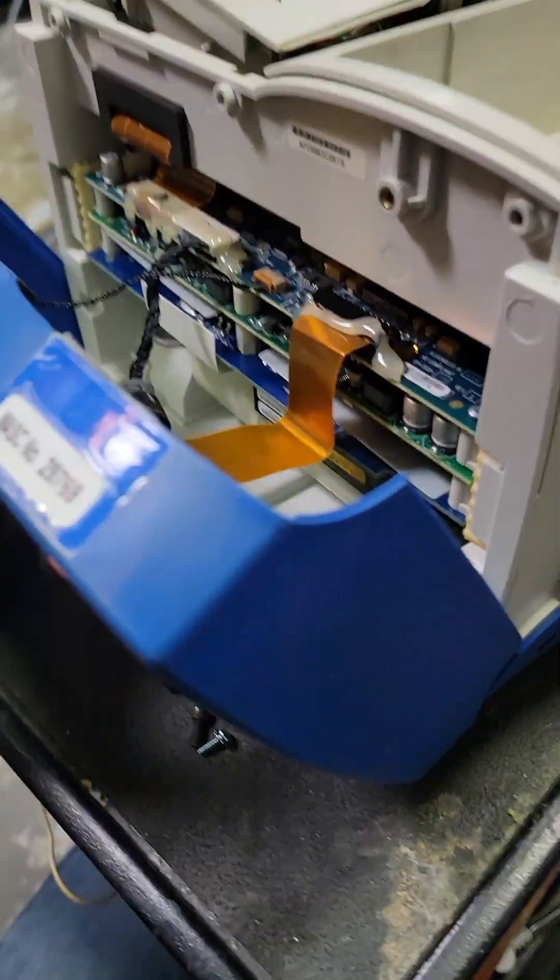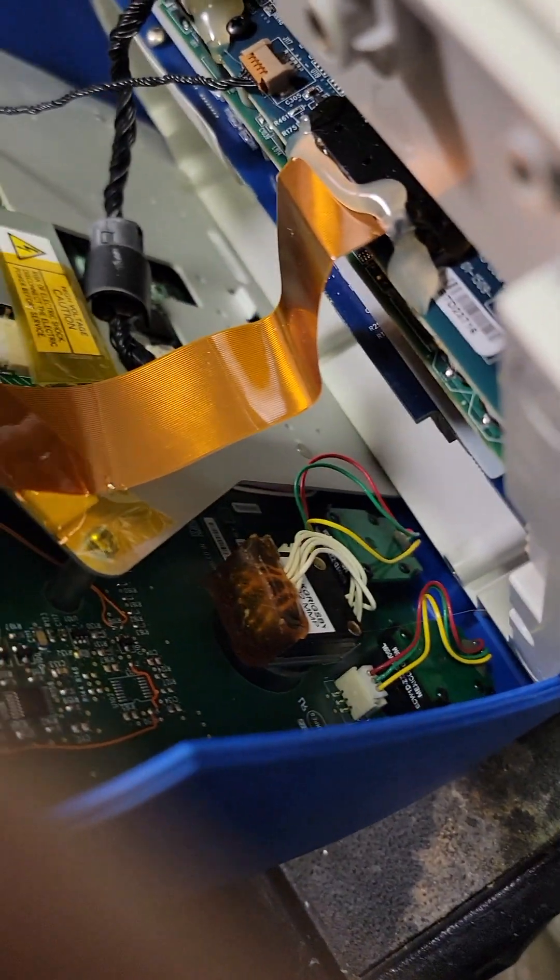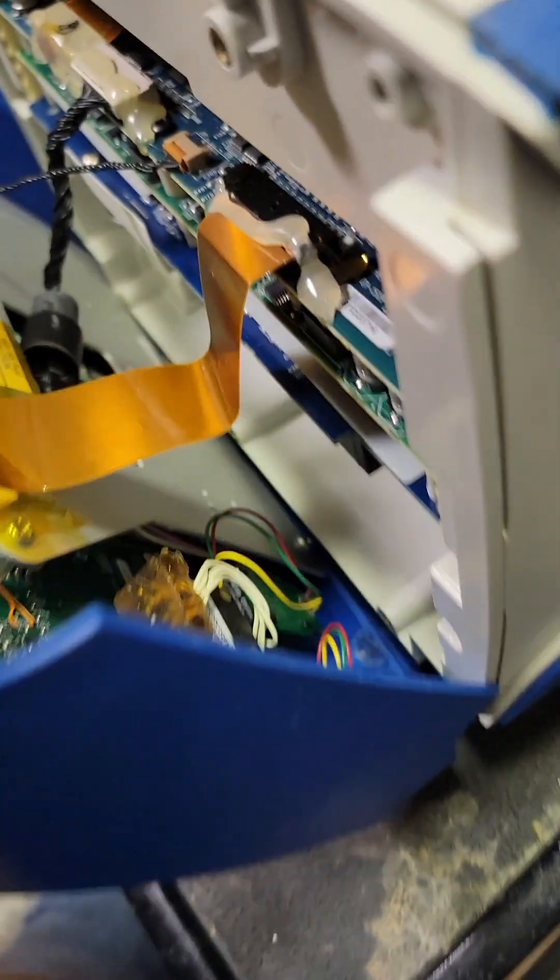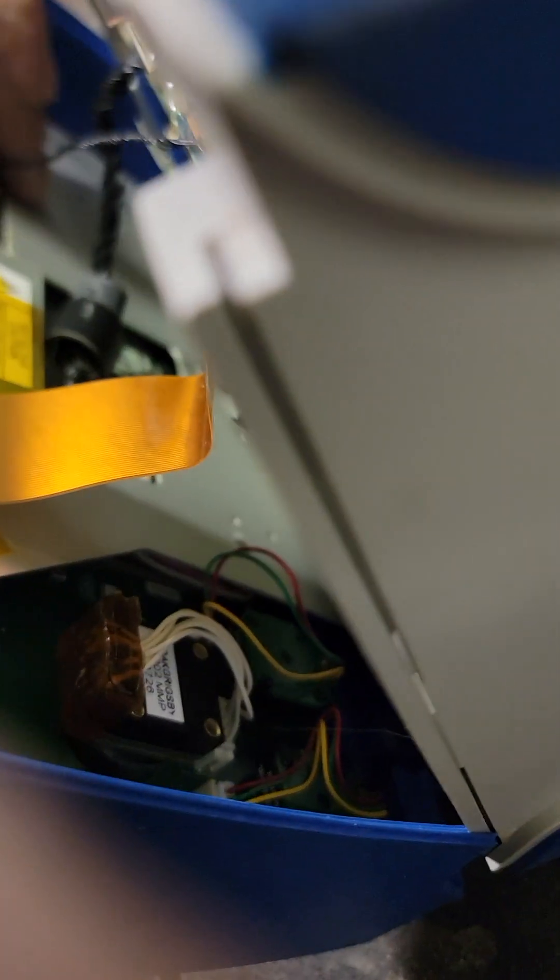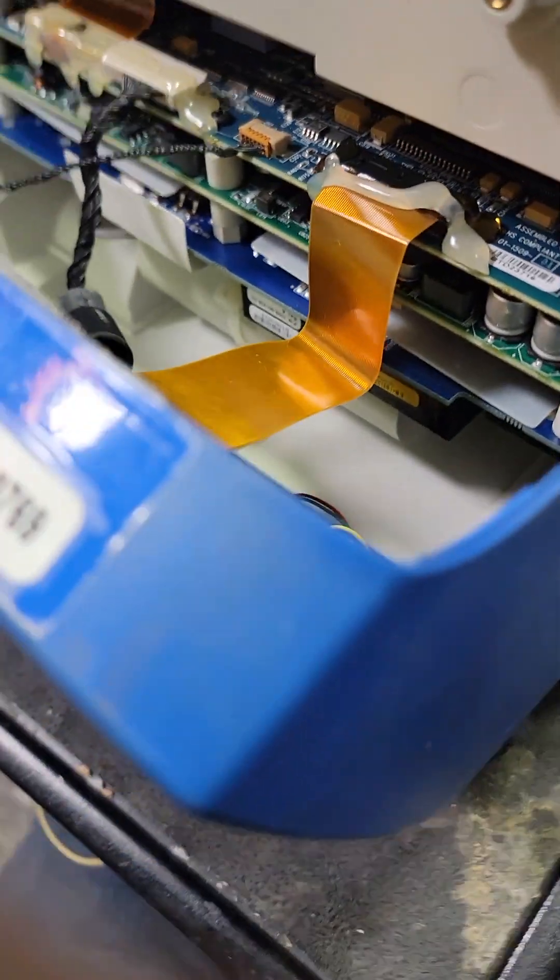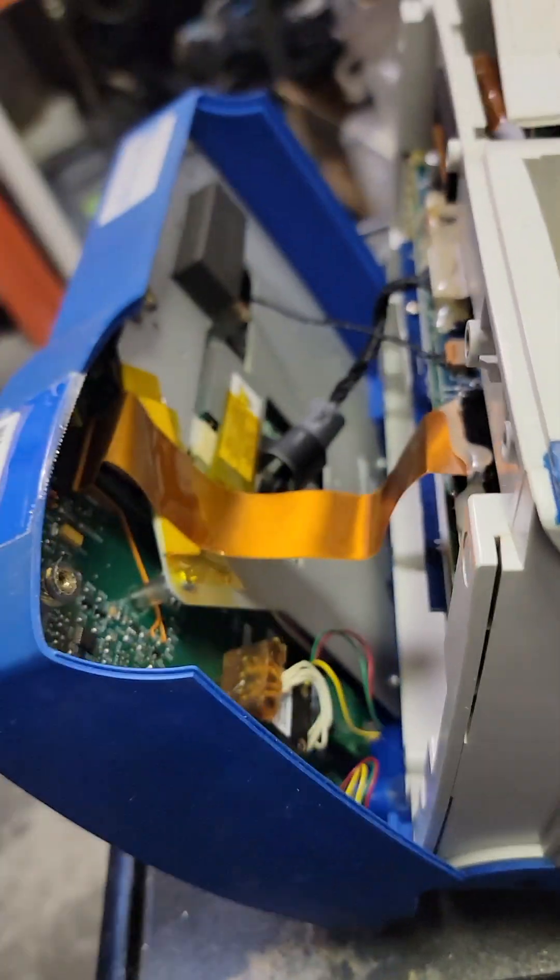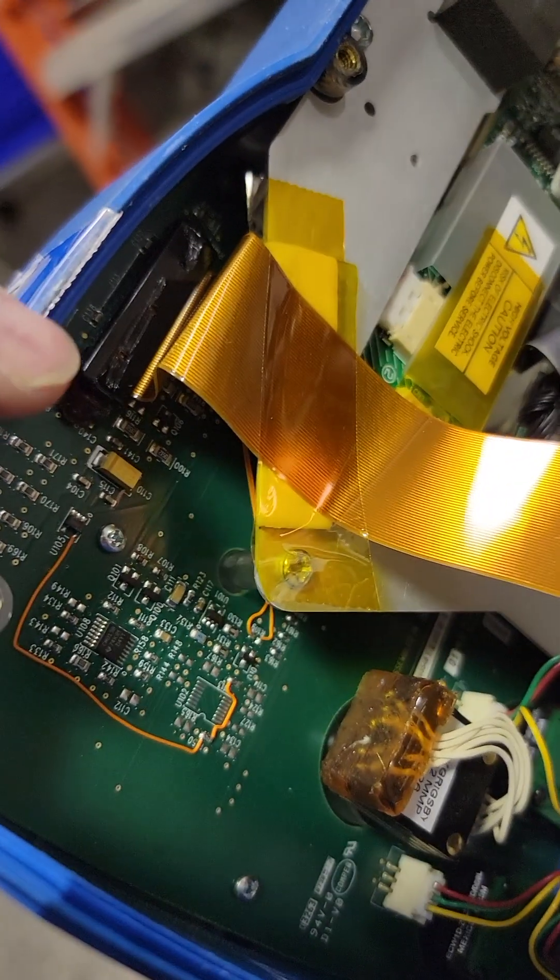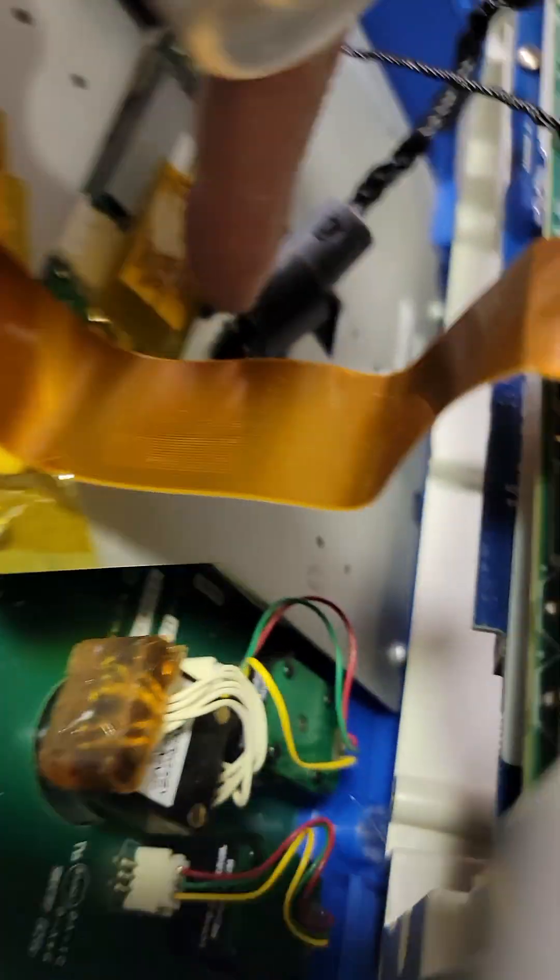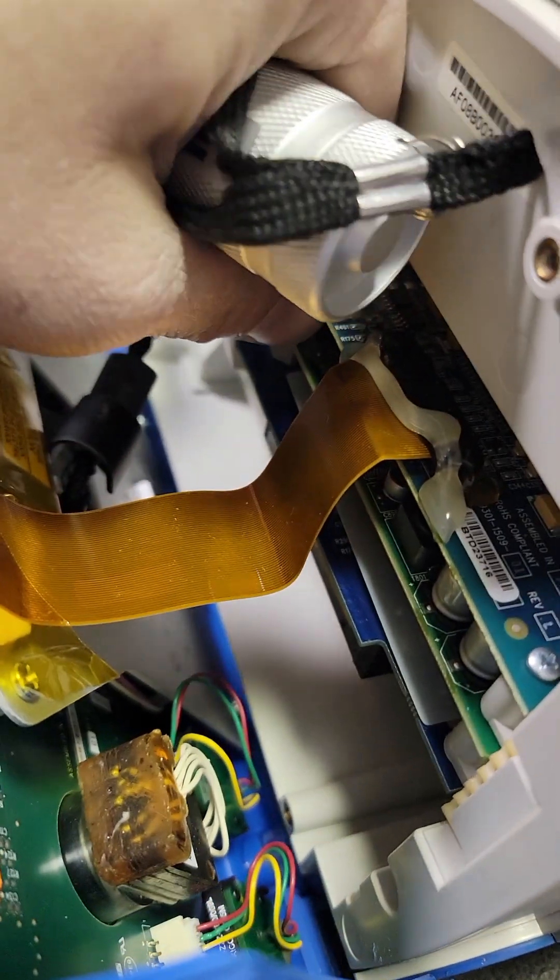There you go. Be careful, watch all the cables in here. You can see it all glued over to hold them in place. It's annoying. I don't want to have to mess with the hot glue, so I'm going to pull it from this side. There's no glue on this side, or this connector here, and then this one of course, just pull it out.